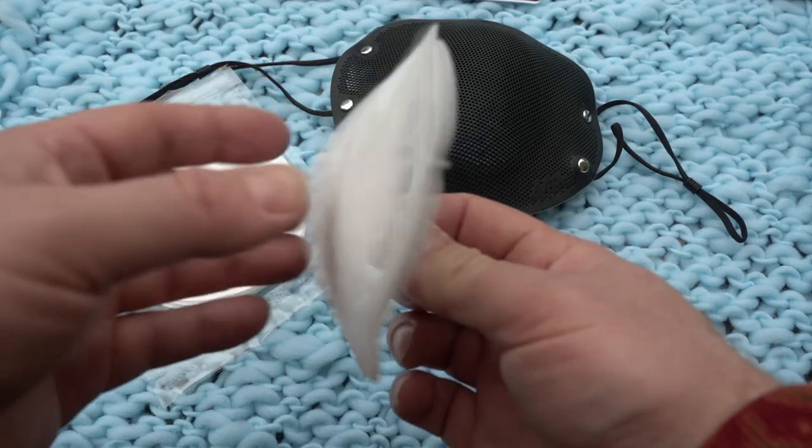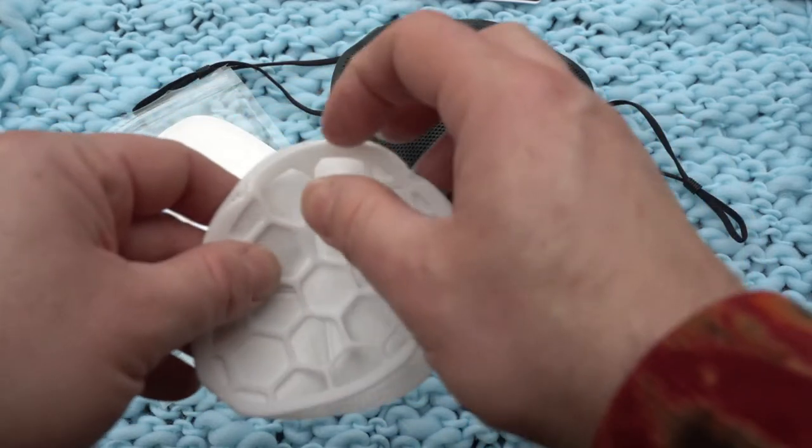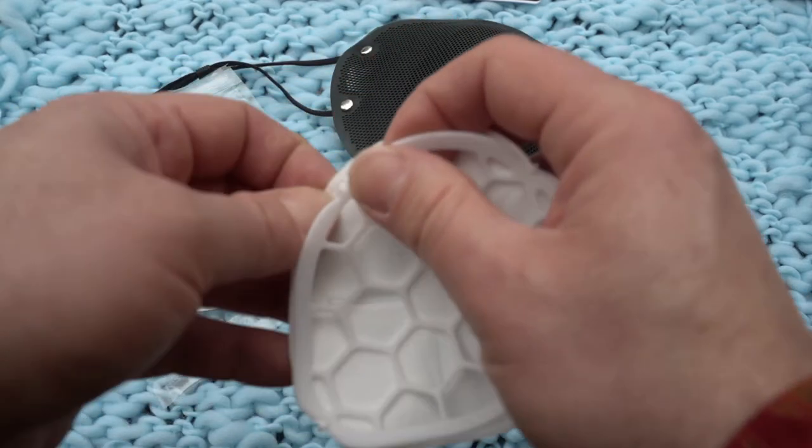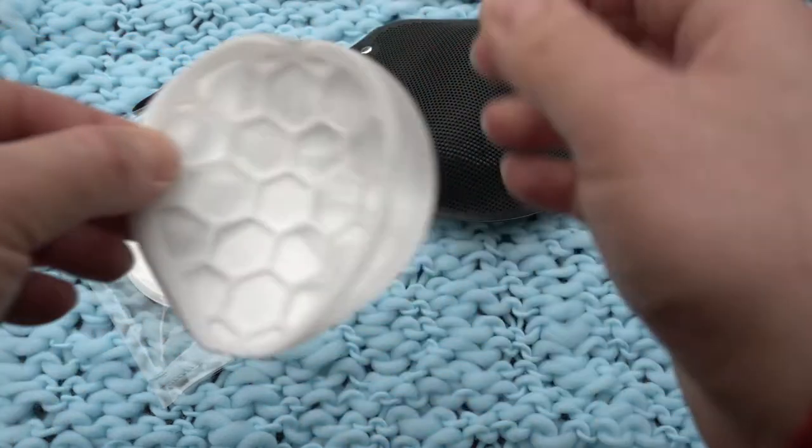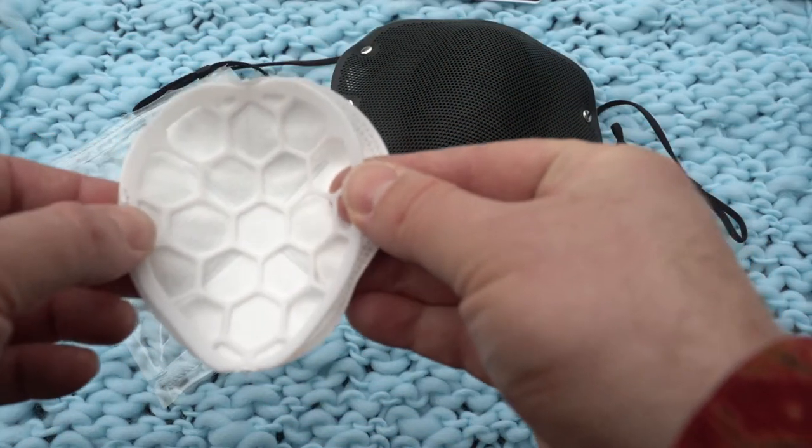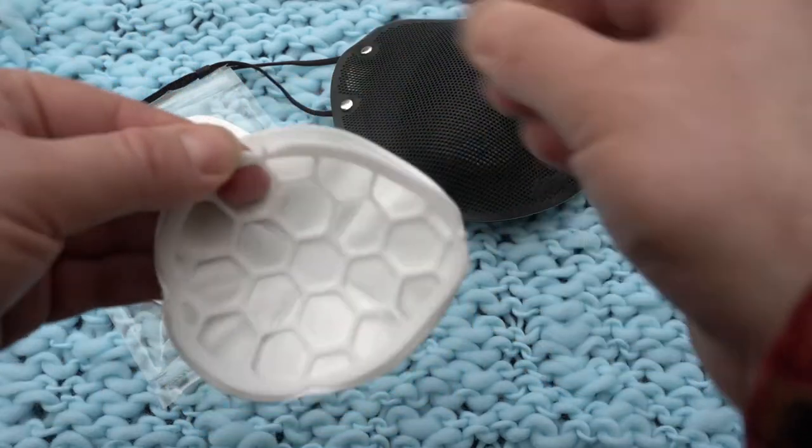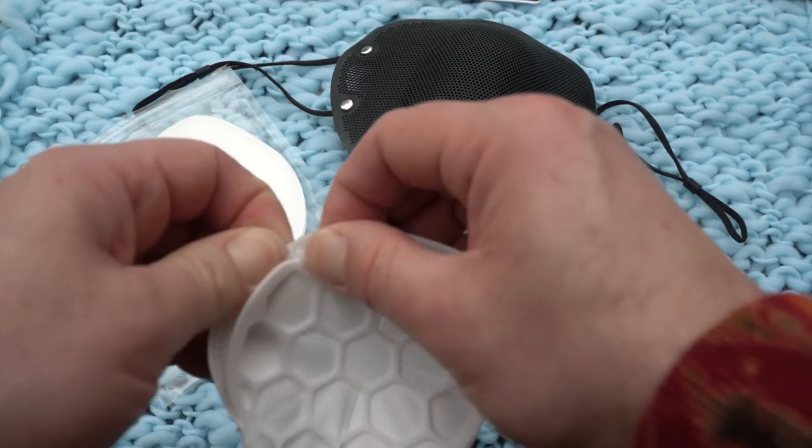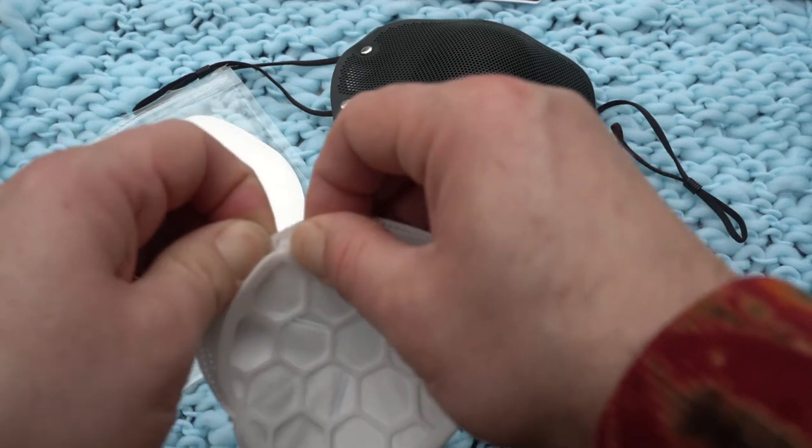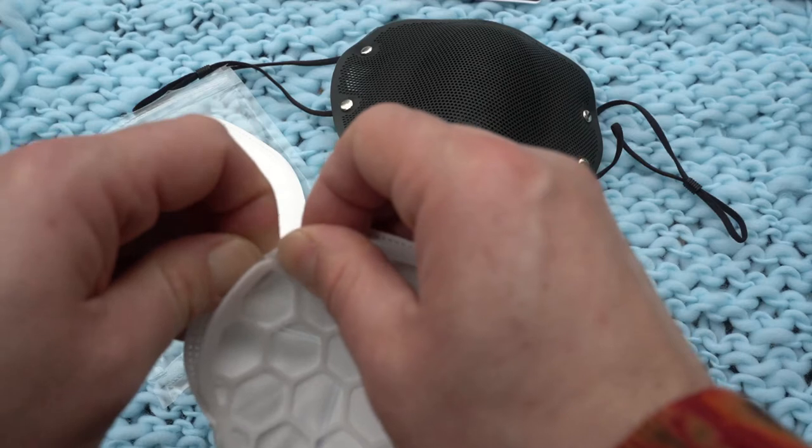So this is under some tension now. And now I'm just pushing. Unfortunately, there's not as much tension as I'd like for the sides, but it's actually not important because you'll see once we put it inside the silicone mask.